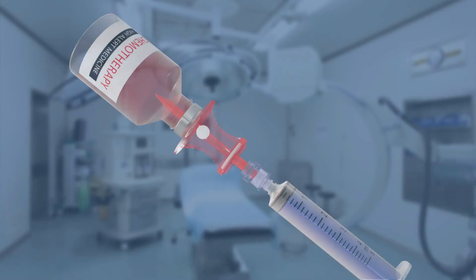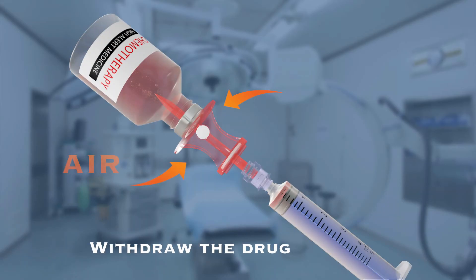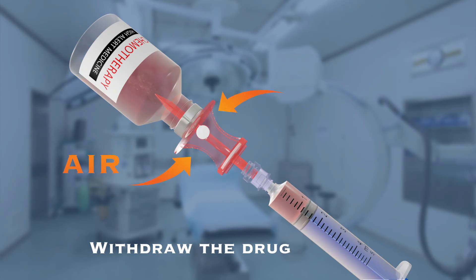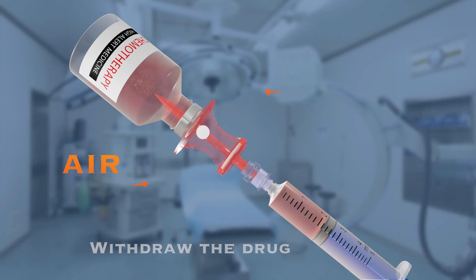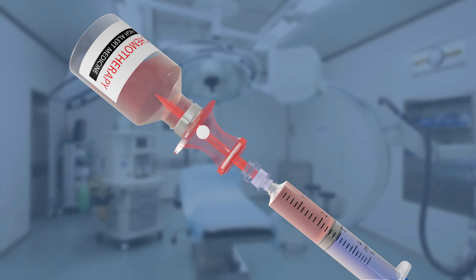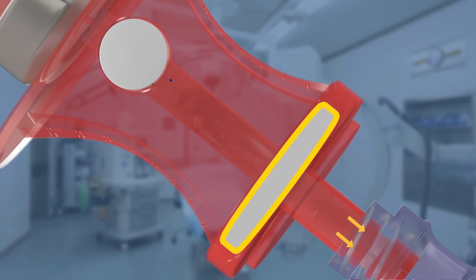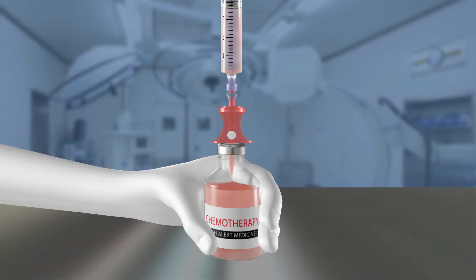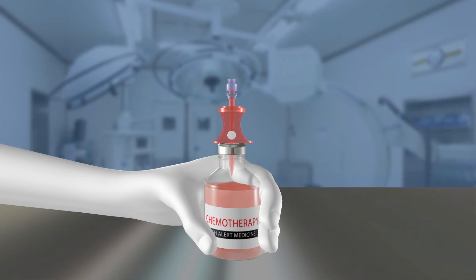Invert the assembly to aspirate the required amount of drug. A bacteria-retentive air filter neutralizes negative pressure developed in the vial by allowing entry of filtered air. A five-micron fluid filter prevents entry of particulate matter and prevents contamination. Remove the syringe by turning in the anti-clockwise direction until it separates.